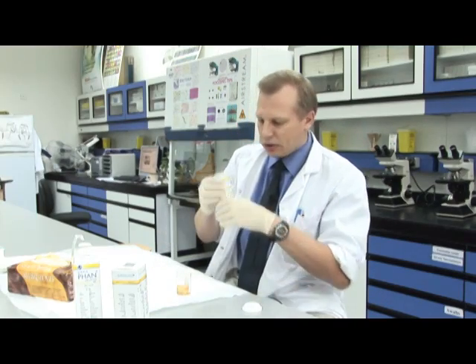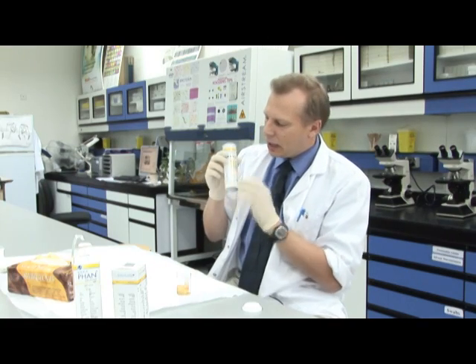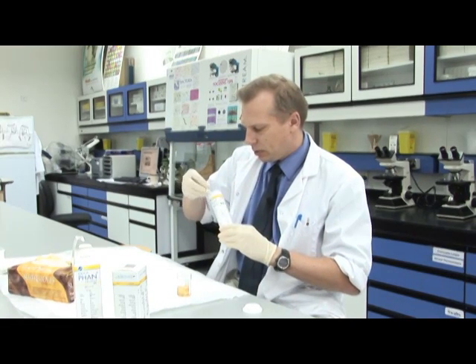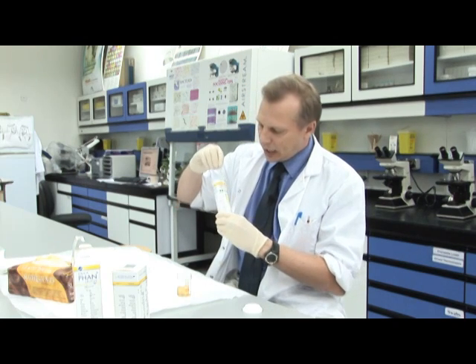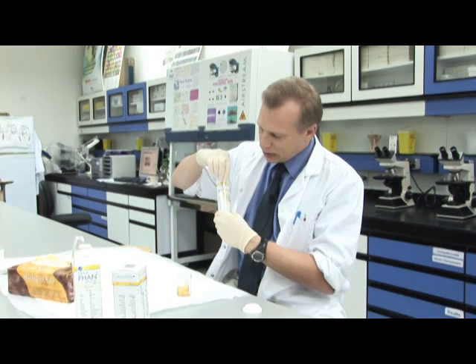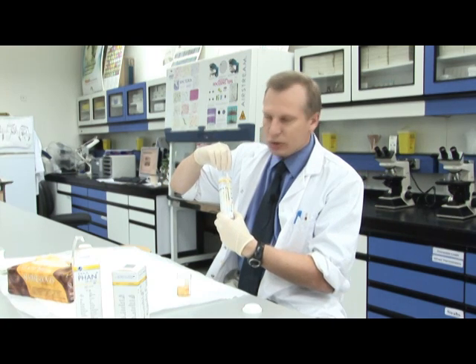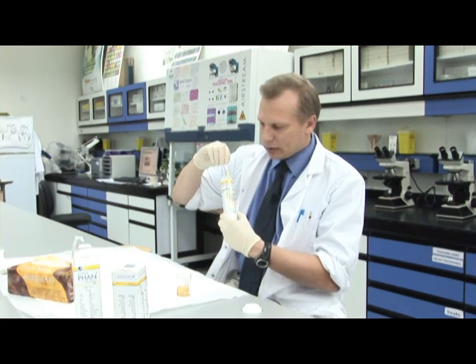And if we look on the side of the vial or the container that these strips come in, it gives us a reference colour range. So normally if we take a non-reacted strip, it looks like this, and then the colour will change and we hold it against the different colours. When we get a colour match we can say if there's been a positive result, and it also gives us rough ranges or concentrations for the different chemicals found in urine so we can make a diagnosis.